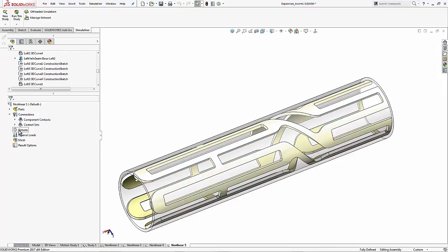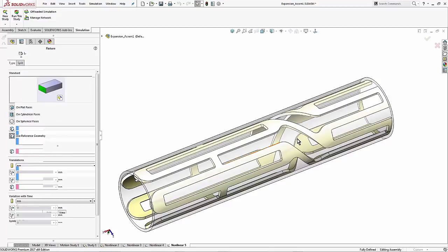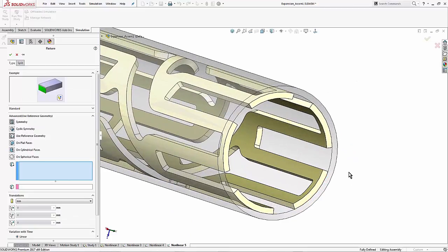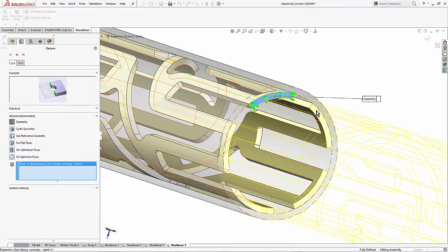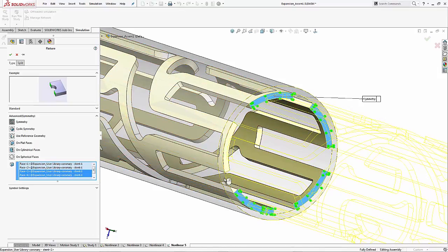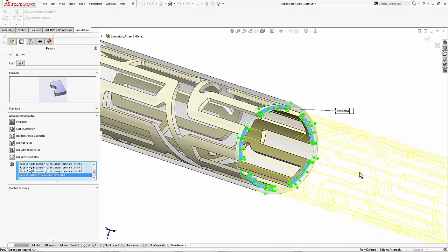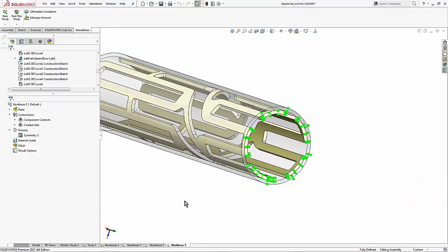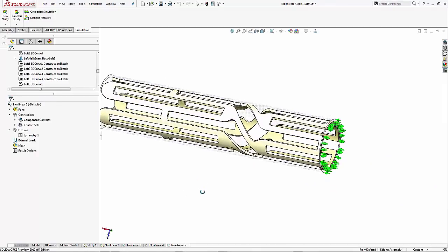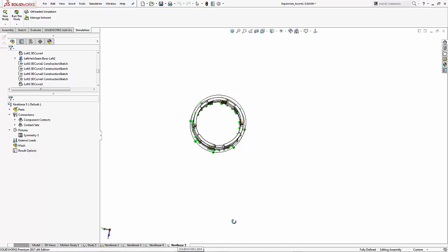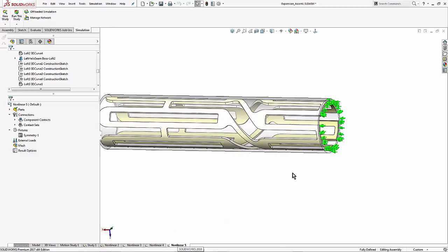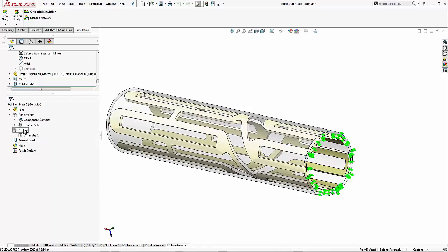Next is our fixtures. First I need to do my symmetry restraint on the back cut faces. Ultimately what I'm aiming for is each of the components being restrained in the X, Y, and Z directions in some way. I've got to make sure I click every single face that was cut, even though the preview showed up earlier in my clicks. Alright. So the symmetry restraint is going to define these components in the X axis. But I still need some Y and Z direction restraints.